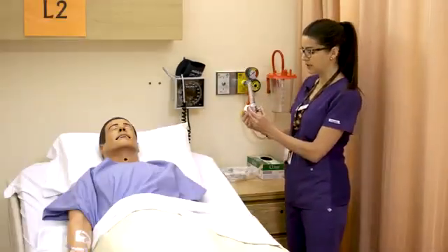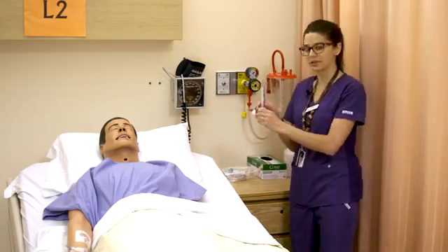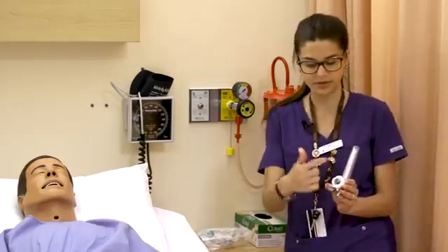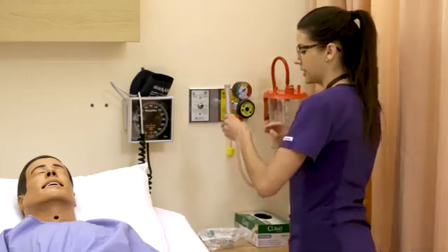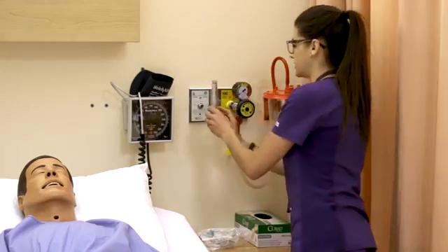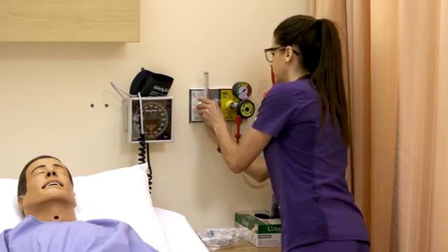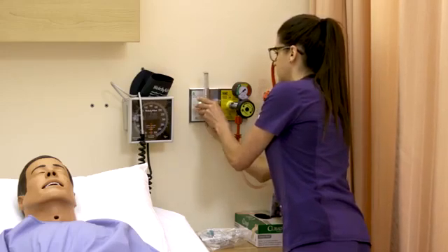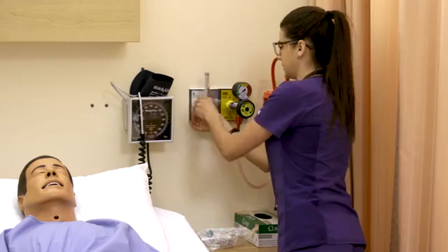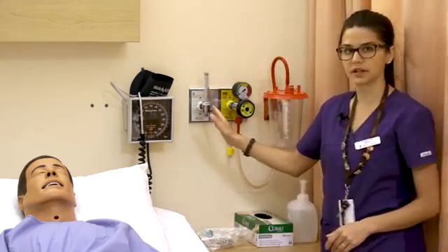This flow meter goes into the wall and makes a bit of a shooting sound — a pressure sound. You attach this white piece onto the screws in the wall, and it'll give a bit of pushback, so you have to make sure it's exactly perpendicular and then you can screw it on. If you don't know that it makes that sound, it can be a little bit shocking at first — it does a blast of air in your face. Now our flow meter is on and attached to the wall.